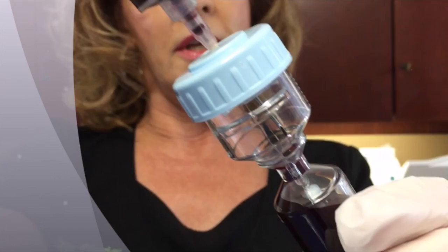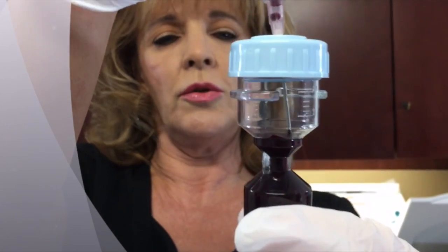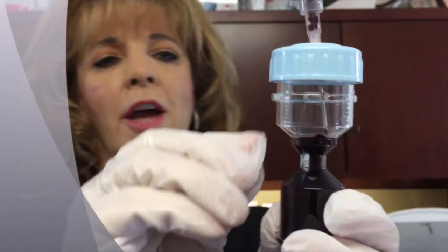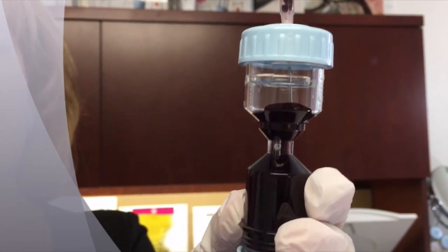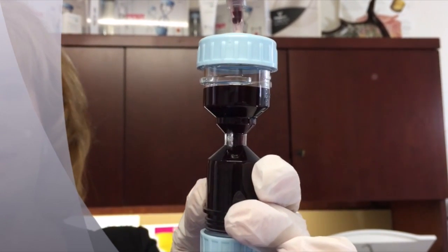When your sample reaches the neck of the kit you can hold it upright and begin to continue to fill. There's a 20cc mark on one side and a 10cc mark on the other. As you're filling, keep an eye on the 20cc mark — you want to not fill your device beyond that 20cc mark. These are calibrated for 20cc's and 20cc's only.